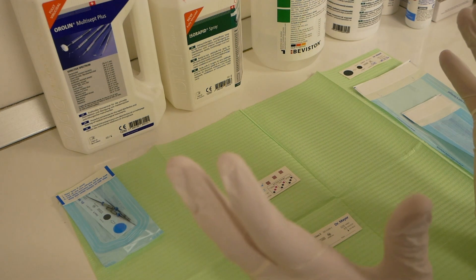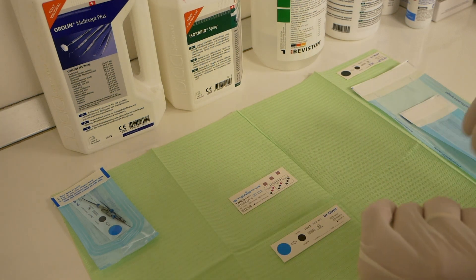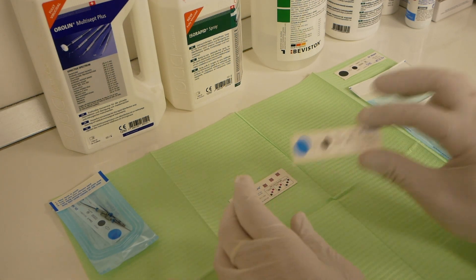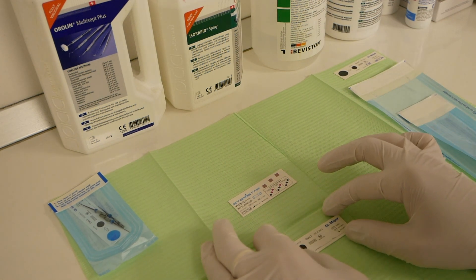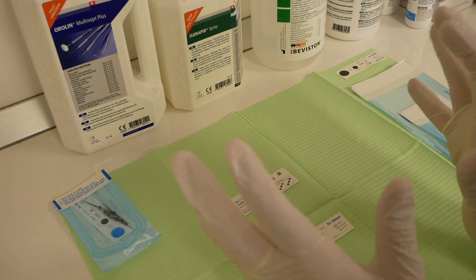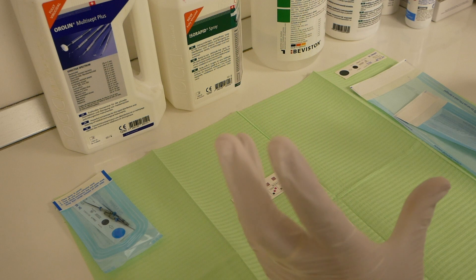The main methods are chemical indicator strips. There are several types of indicator strips from Class 1 to Class 6, but today we'll talk about the mandatory ones, which are currently the Class 5 indicator strips. As you know, most sterilization pouches include some sort of chemical indicator that changes color when certain conditions have been met. Most pouches have a Class 1 chemical indicator strip.